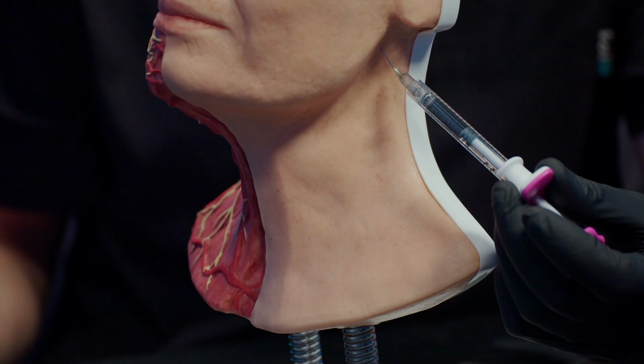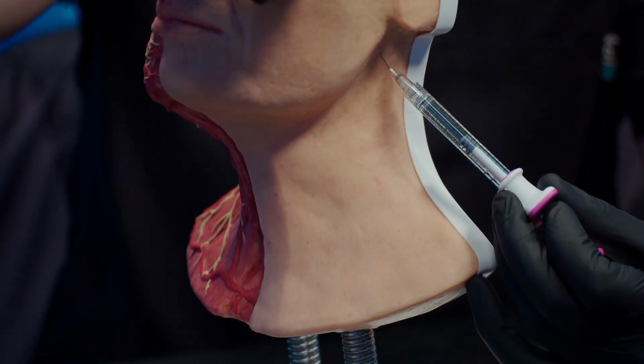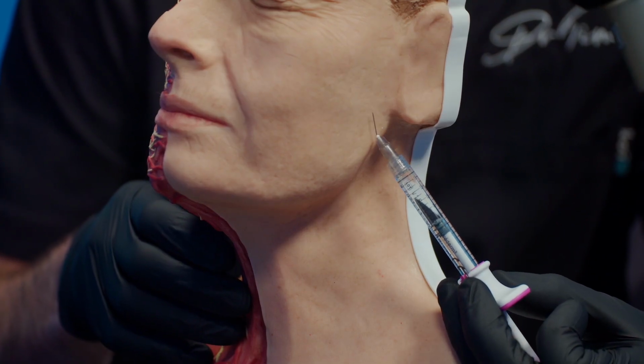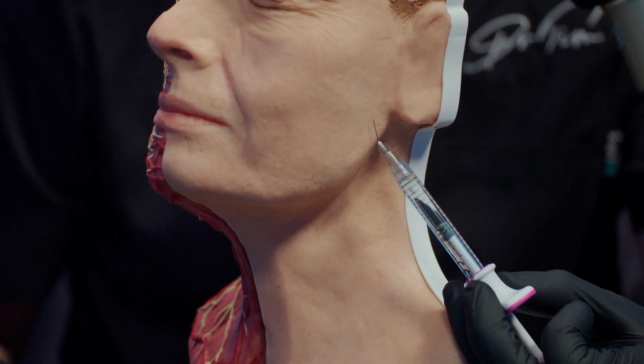which is often in the way when you just want to treat the gonial angle, or if you're using a cannula that's going higher up the face. That little bend can be helpful in some instances, maintaining the position or the depth that you want to be in, particularly when you're using a cannula and you can't get easy access because of the shoulder. There are actually multiple other places that you can also use this technique, and we'll cover shortly how to do this with lips and how to curve a needle instead of bend it.